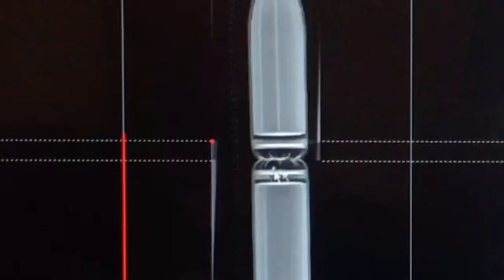Setting the technique manually is very important for stitching. However, most DR systems will have a preset technique that comes up when the exam is selected. That being said, it's important to pay attention to patient body habitus as well as any pathologies that could possibly alter the required technique.